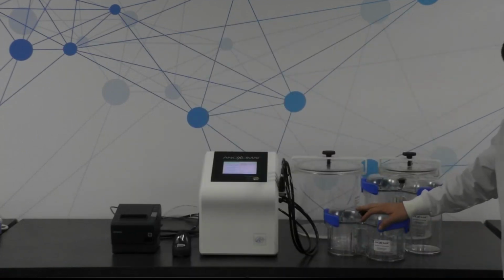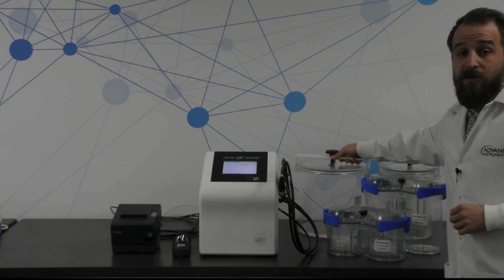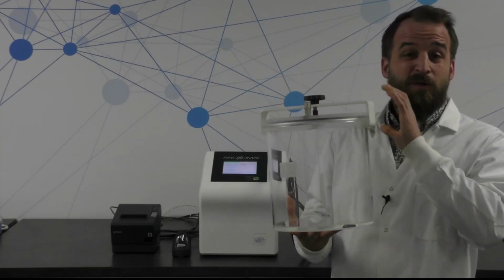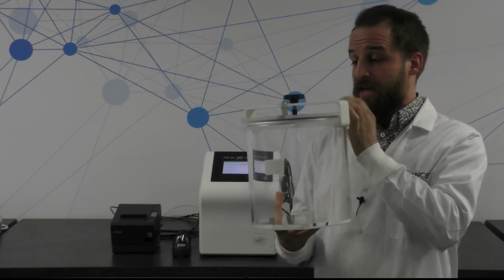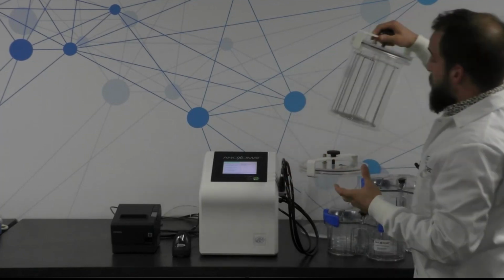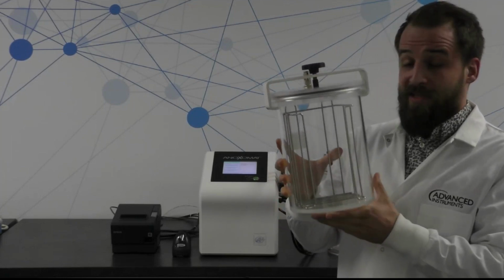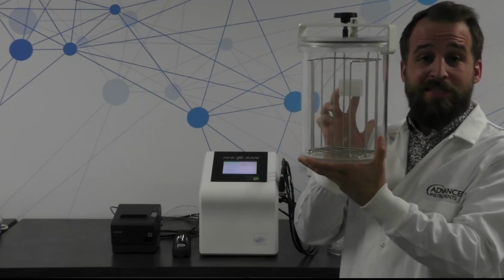With this also comes a few different types of anaerobic jars themselves. So this big one is our legacy jar. If you've used some of the older systems, you've definitely seen this and are familiar with it. It holds 3 towers of plates, and so it can hold a total of 36 plates altogether. We have this other acrylic jar as well. It holds microtiter plates and 2 racks. So it actually has a rack in place right now that's intended to hold your 96 well plates.